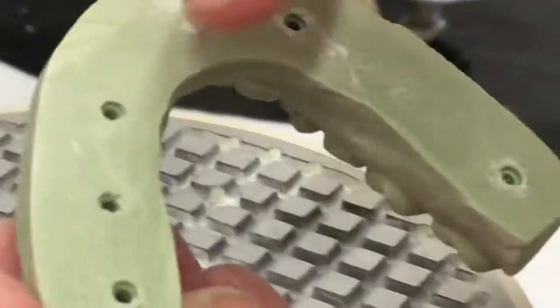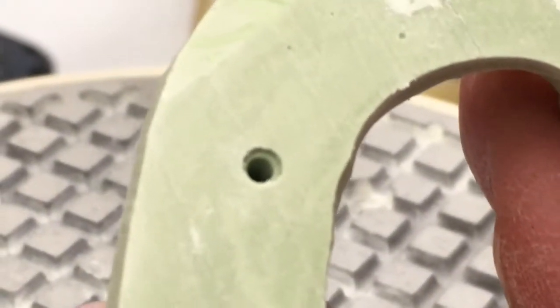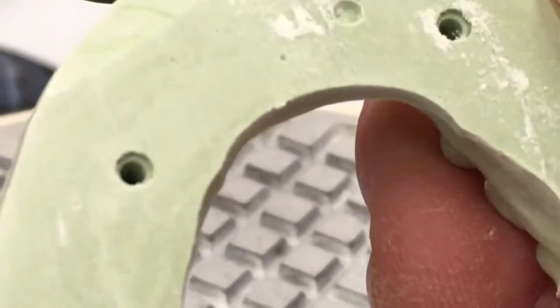That's it. We should be able to see a larger short hole, about a millimeter, and then the smaller diameter hole that goes down into the cast.